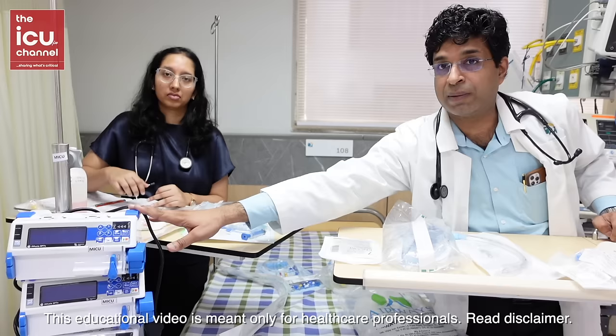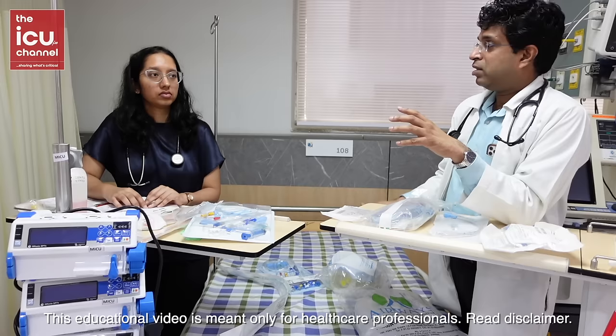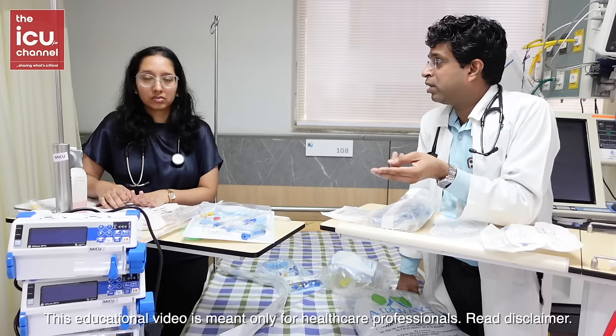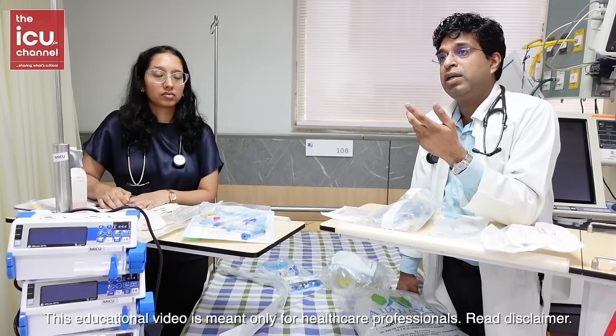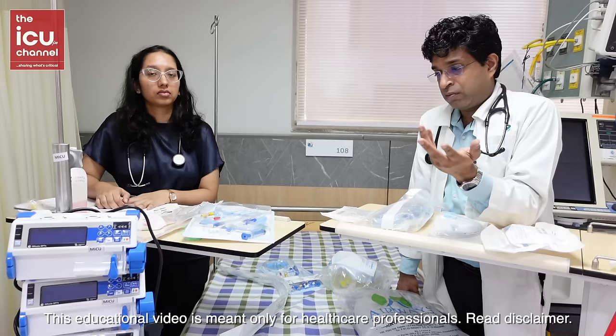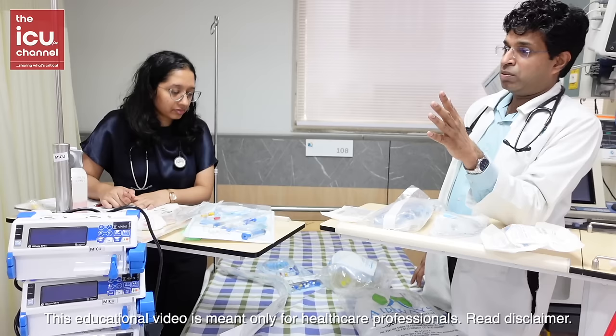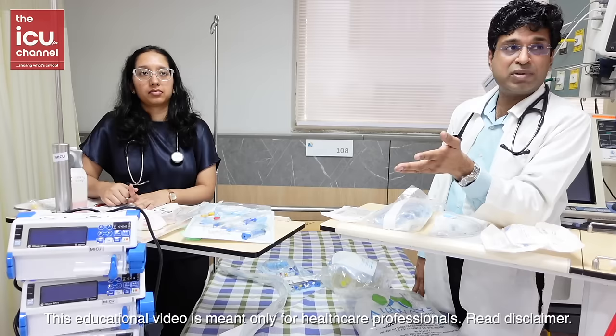These are infusion pumps. Medications that need very fine adjustment are given through infusion pumps — vasopressors like adrenaline, noradrenaline, vasopressin, dopamine, dobutamine. Also highly osmotic agents like potassium, concentrated sodium chloride (3%), and insulin require infusion pumps because too much insulin causes hypoglycemia and too little gives poor glycemic control. Circulation is managed through central lines and infusion pumps.